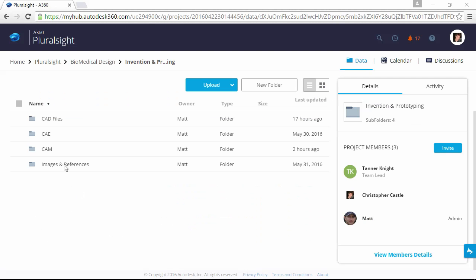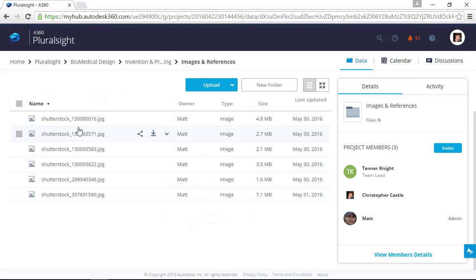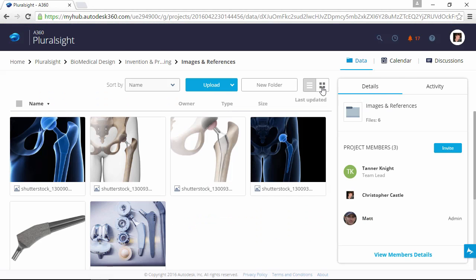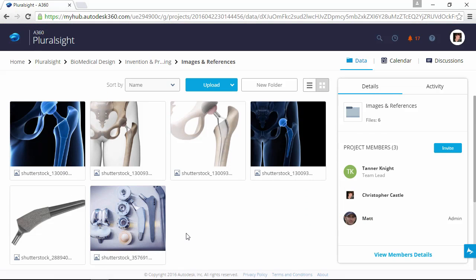Our medical team has provided us with photos of a handcrafted prototype that was determined to be an ideal shape for the implant. Since it's an organic shape, it only contains a few major dimensions. We've been asked to create a parametric Fusion design that will allow us to easily collaborate with the medical team. It's important that we make the design as close to the concept as possible, so we will utilize these photos directly into the design.